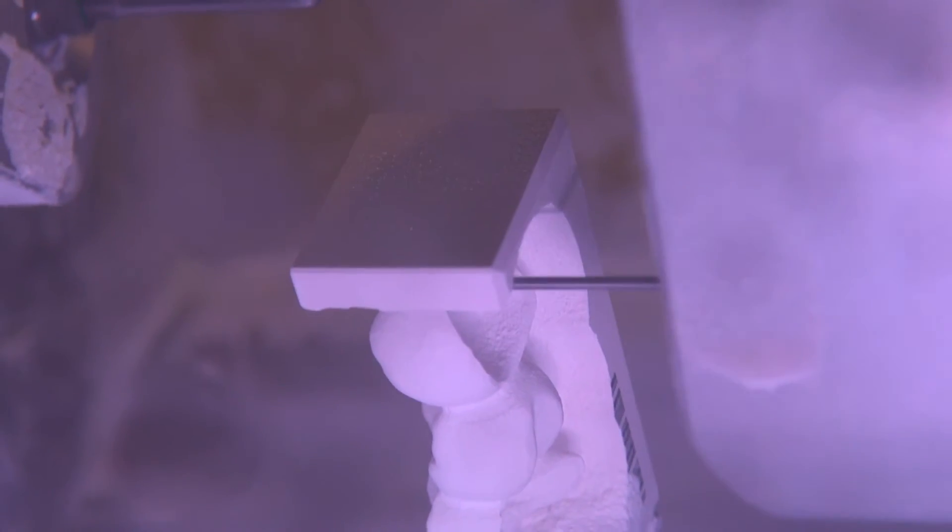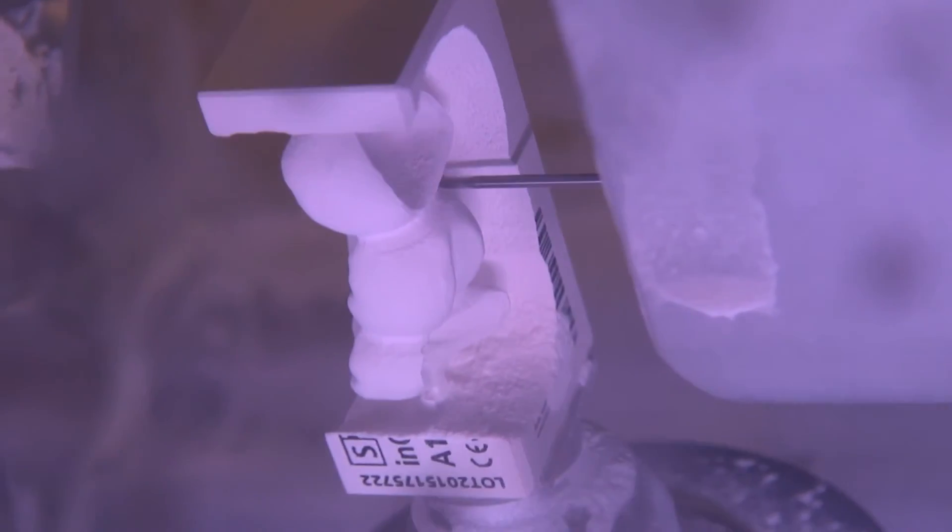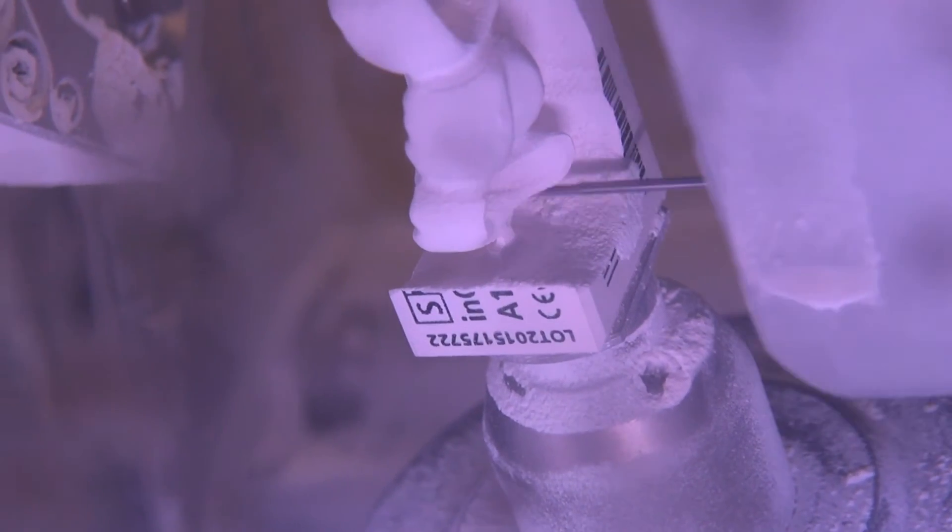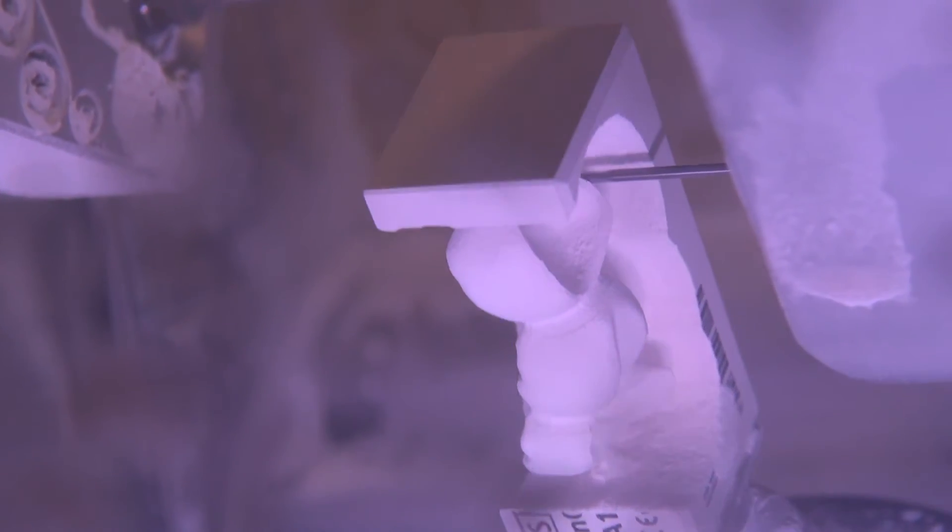So Sirona has broken the barrier when it comes to zirconia. They've now made it chairside. What we can do with a dry milling system and a new induction sintering oven, we can sinter zirconia while the patient waits. This isn't even one day dentistry. This is the same visit. If you want zirconia on those posterior restorations, the new Speedfire system from Sirona rocks.